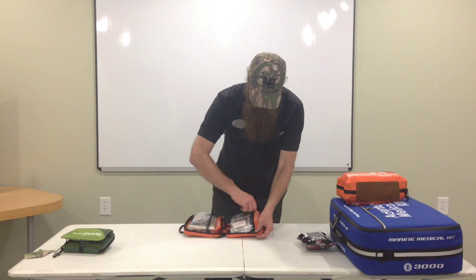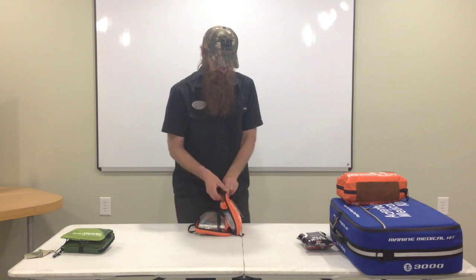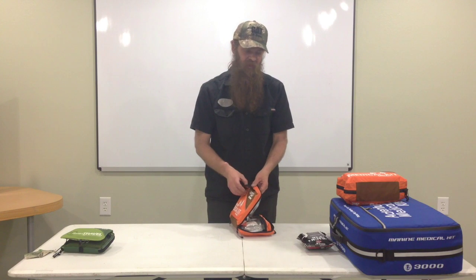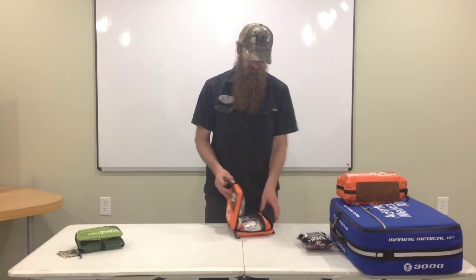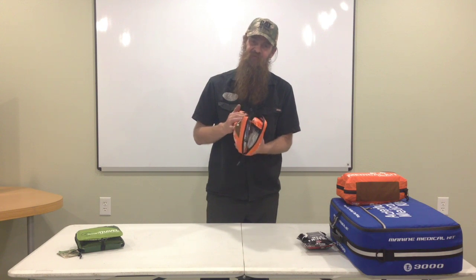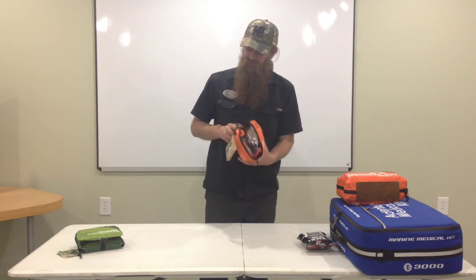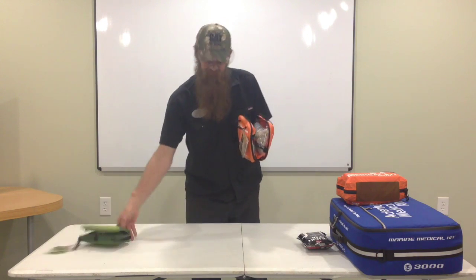It's basically a hefty first aid kit and it's a pretty nice kit. The only thing I don't like — I noticed it right away — is the material it's made out of. It's pretty thin, not as thick as I thought it would be. I thought it would be more like the material on the Smart Travel kit. You can actually see through it; it's maybe just a little bit heavier than a tent. My thought is, this is the Sportsman Series for hunting — if you're taking this out in the woods, you want something a little more heavy duty.